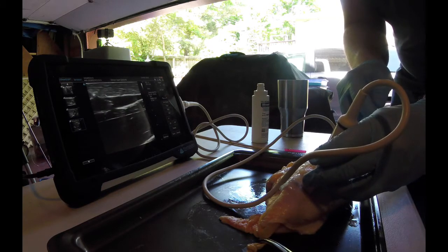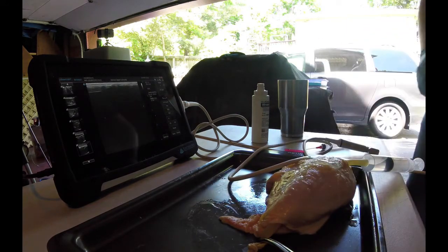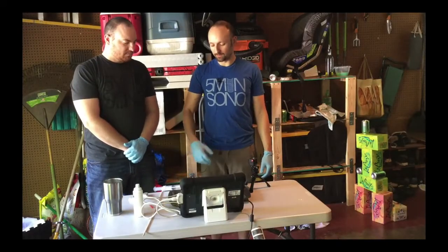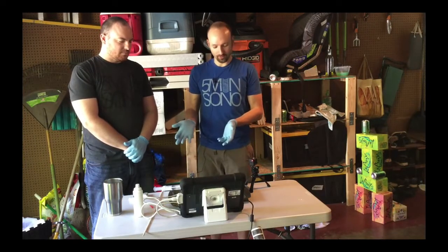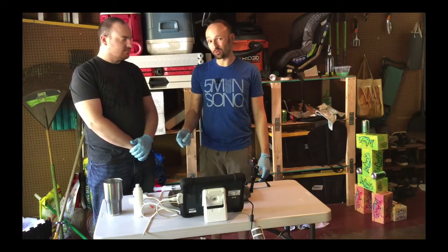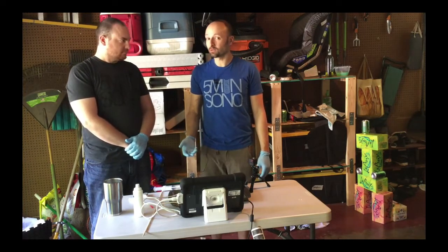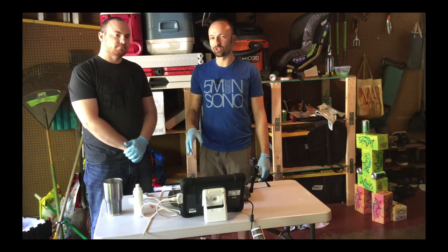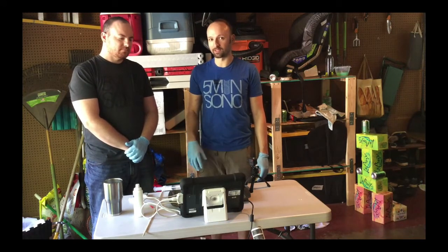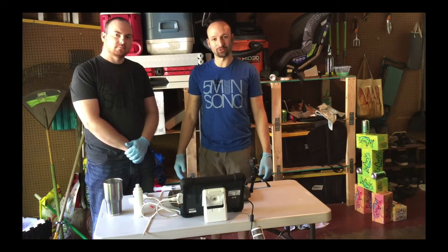So you can see it is reusable, and that's it. This was not very complicated, really easy to do. Obviously when you're done with it, you should probably throw it away. You can use silicone tubing if you want — that would more likely simulate what an artery feels like. The latex tubing is good because that feels a lot more like a vein, so I definitely use latex tubing. Hopefully this is helpful to you guys — let us know what you think. Thanks.